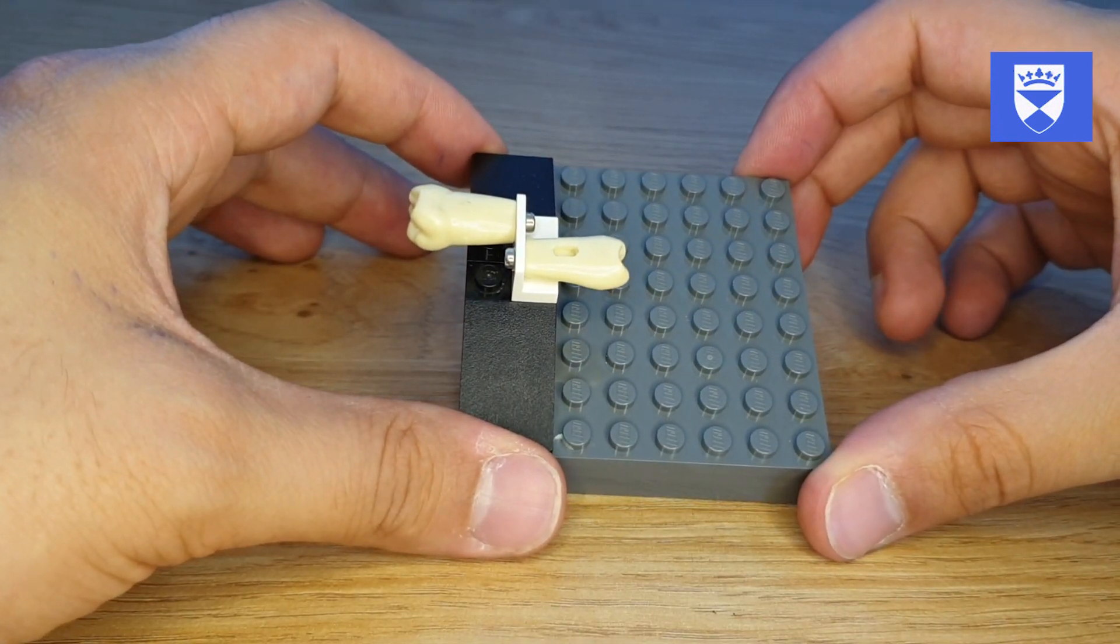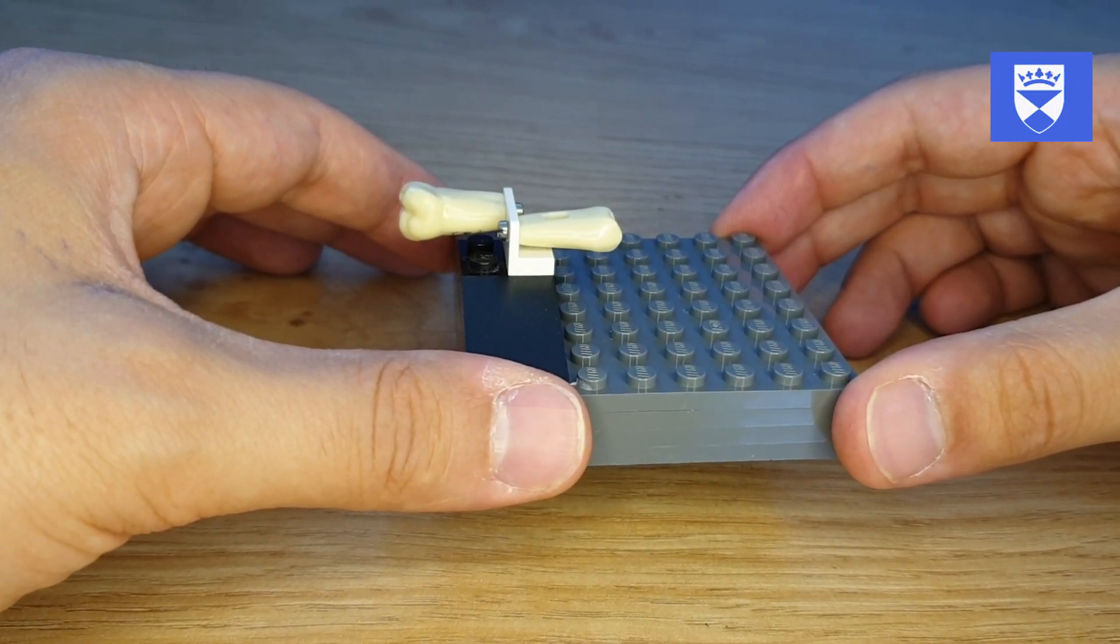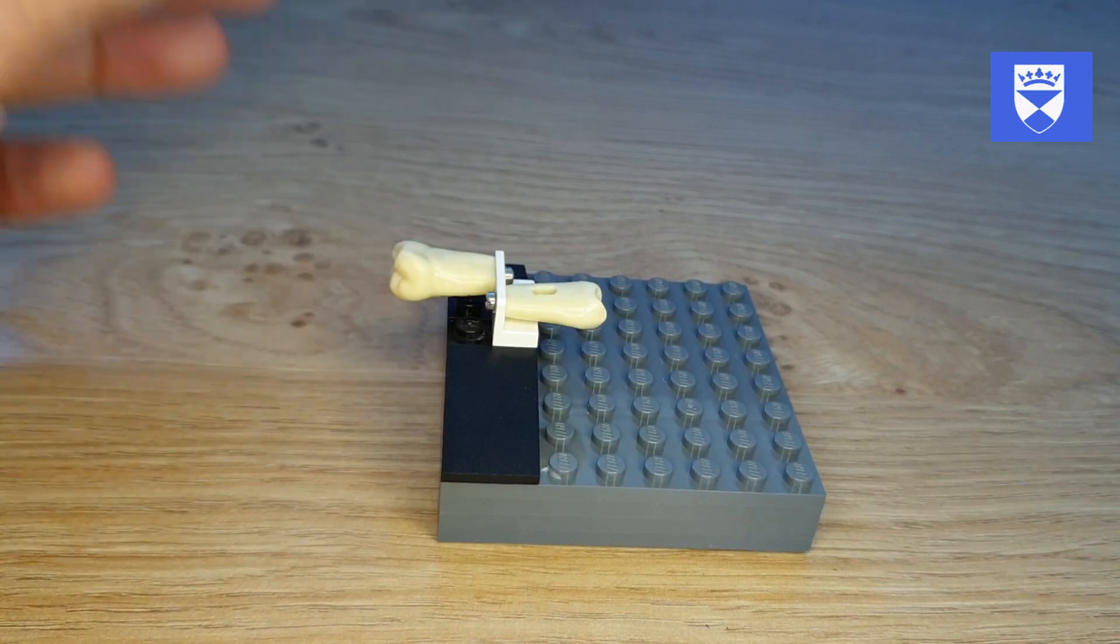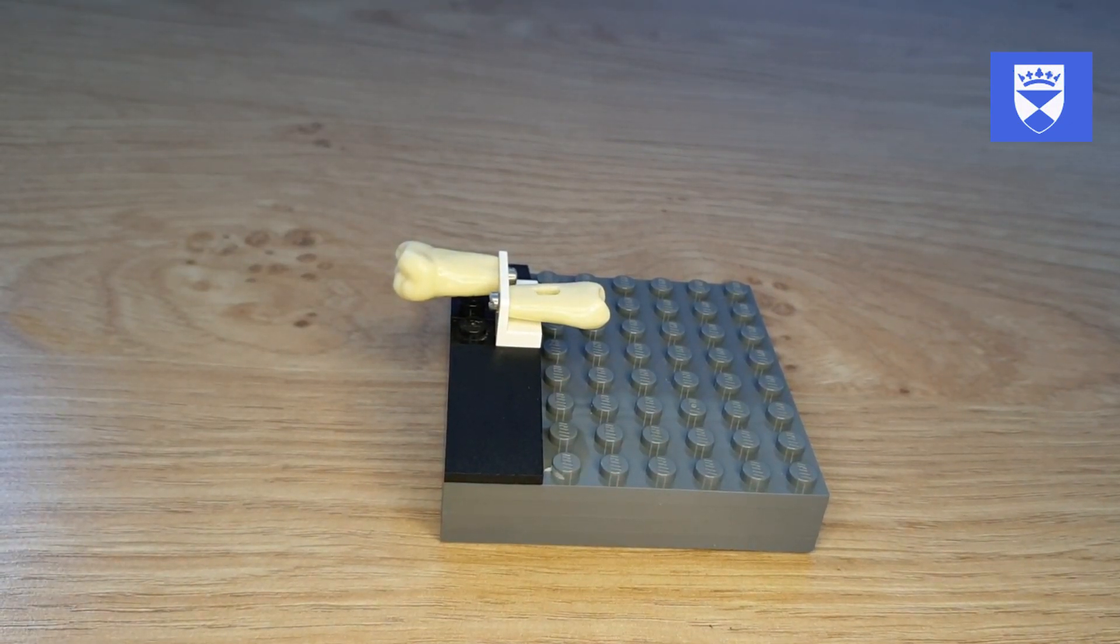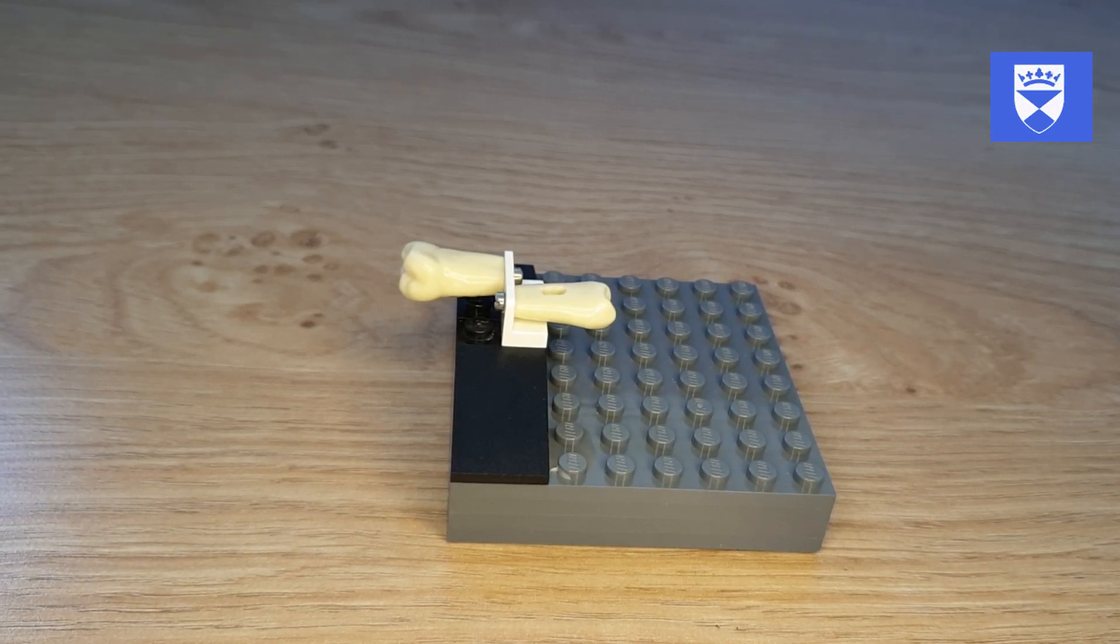Here we can see the current version of the Modular Universal Mounting System, or Dental Mums, that we use to teach our first year dental students about the core skills required for the use of rotary instruments.